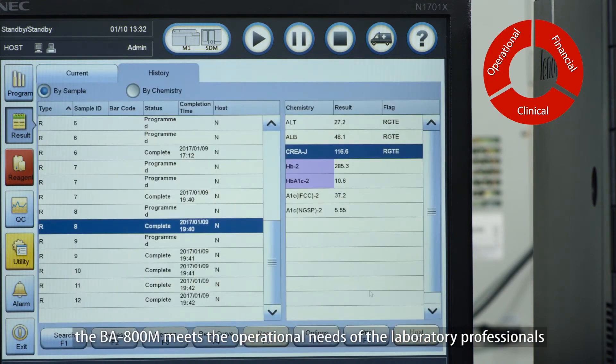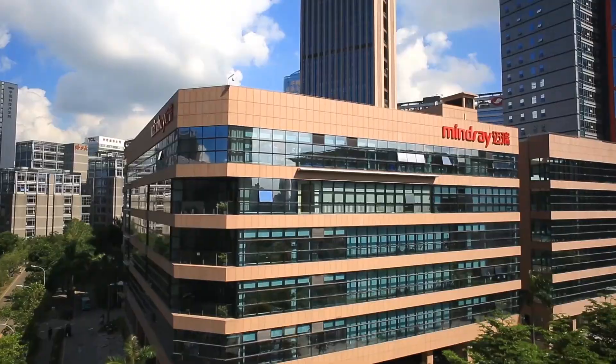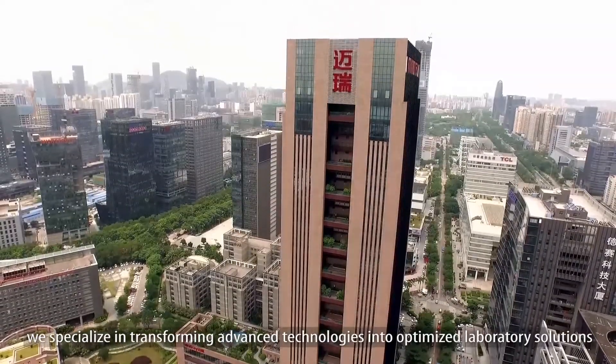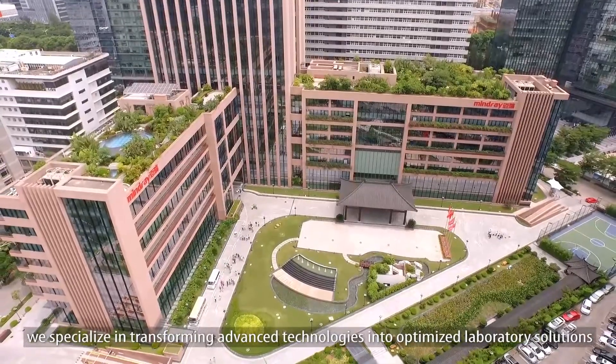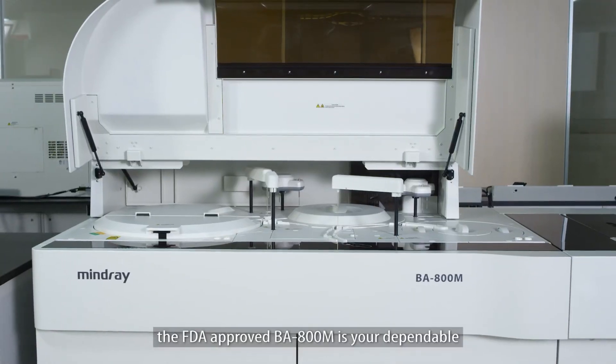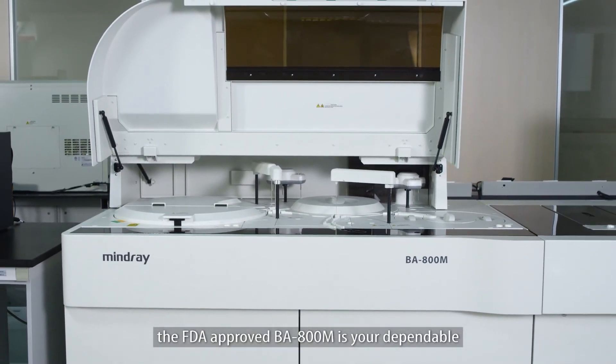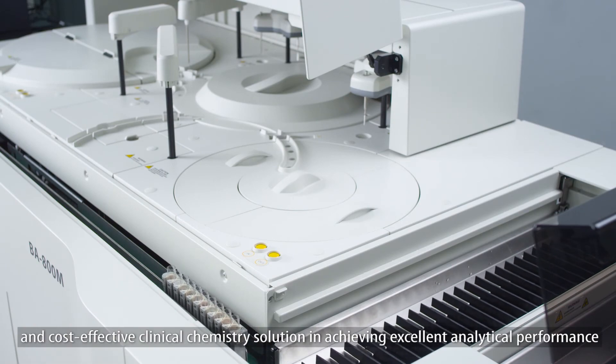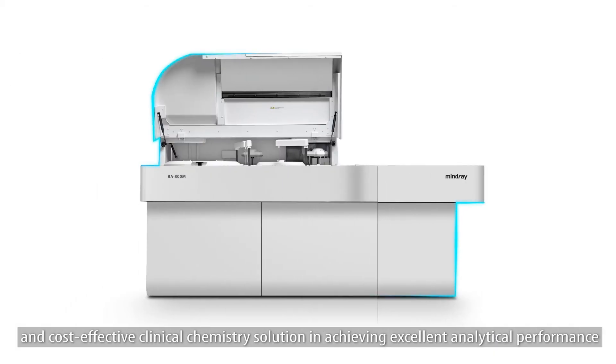As a result, the BA800M meets the operational needs of laboratory professionals. At Mindray, we specialize in transforming advanced technologies into optimized laboratory solutions. With enhanced accessibility and robust functionality, the FDA-approved BA800M is your dependable and cost-effective clinical chemistry solution in achieving excellent analytical performance.